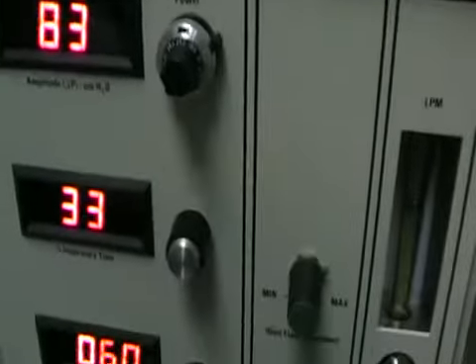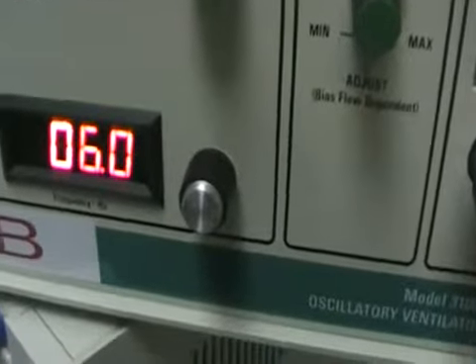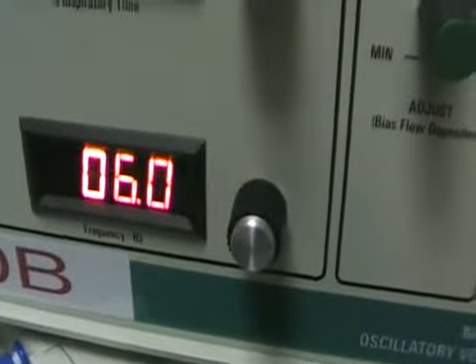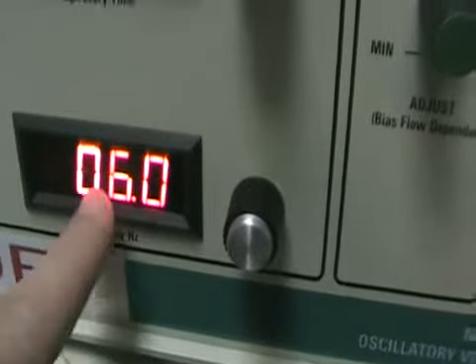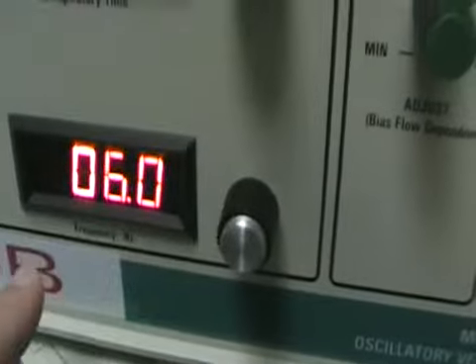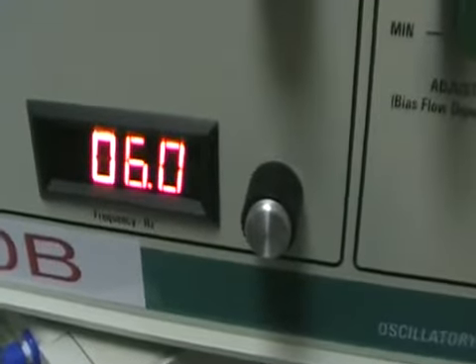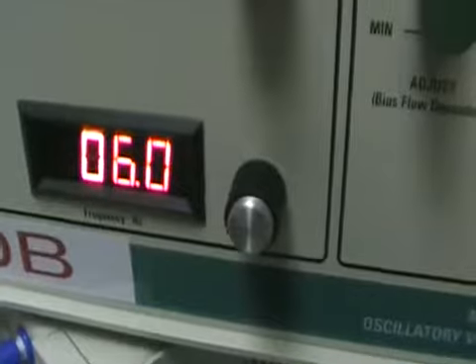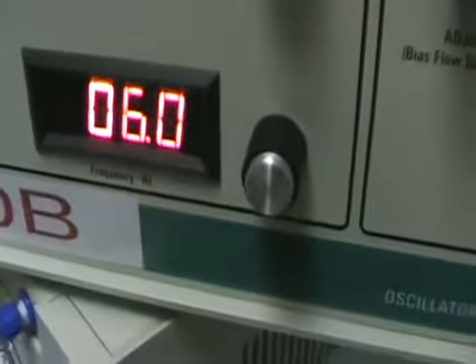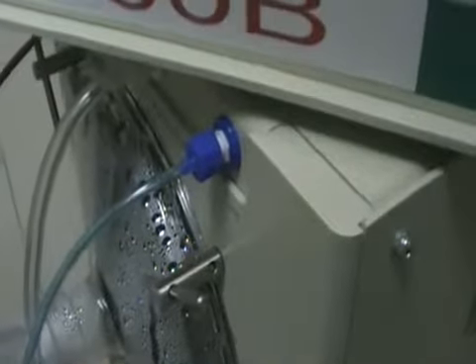After that, we want to determine how fast we move that piston, and that's done by the frequency, which is in hertz as you can read here — currently set at 6. We dial it in with this control. Each hertz represents 60 cycles, so 60 times 6 in this case would be 360 cycles per minute — we move the piston back and forth 360 times a minute.